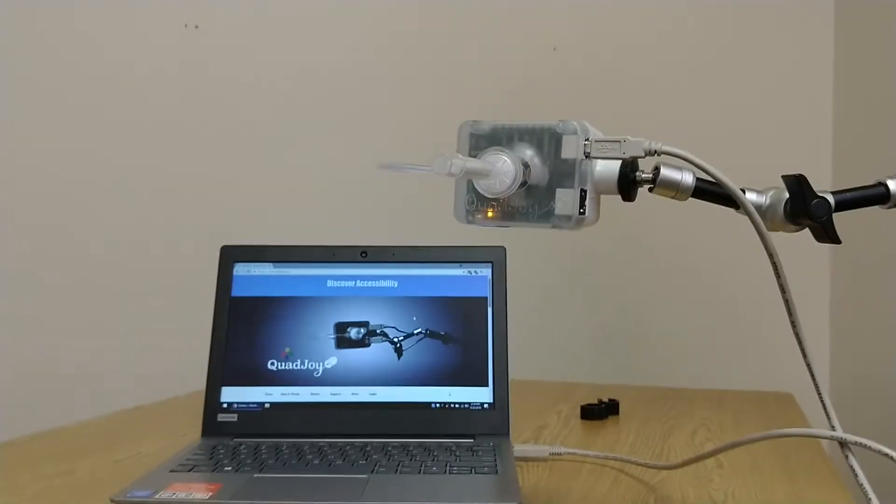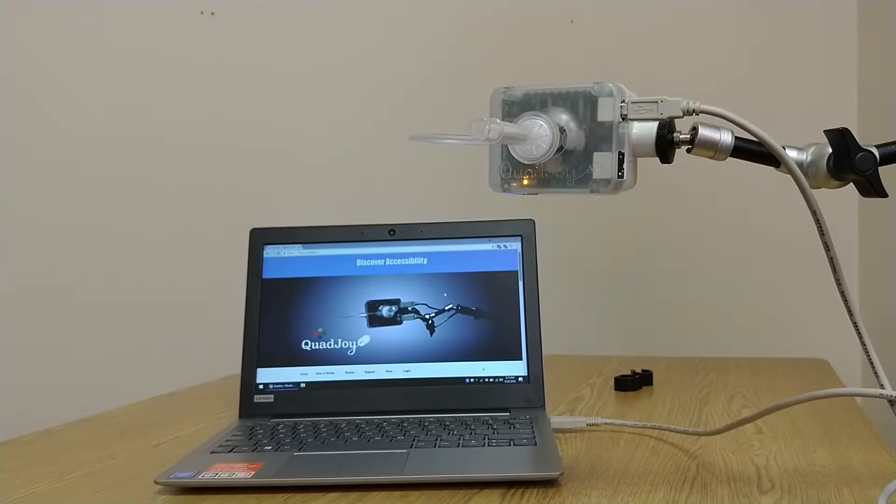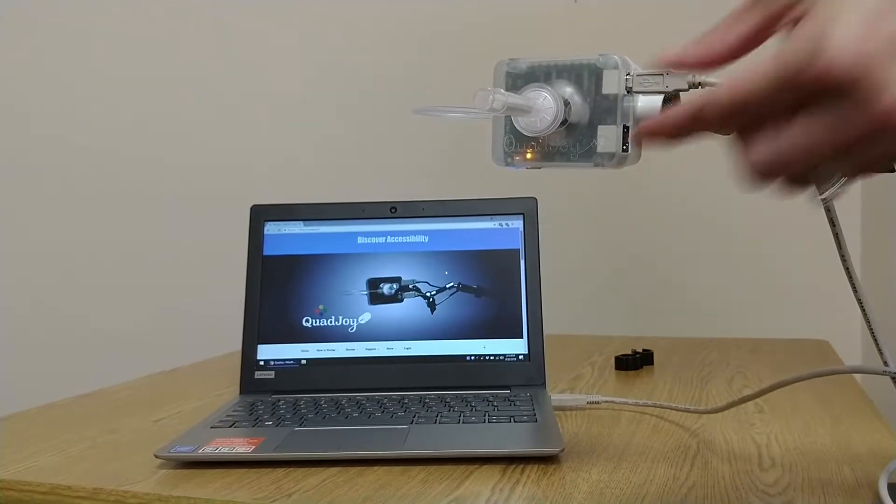When you plug in the USB cable, the computer will auto-detect, that's what that sound was. The Quad Joy should be ready to go.